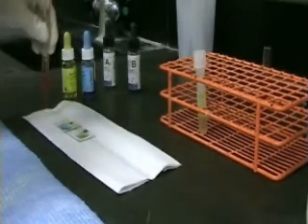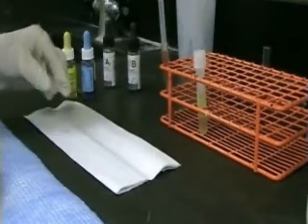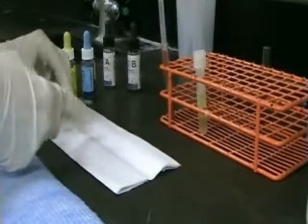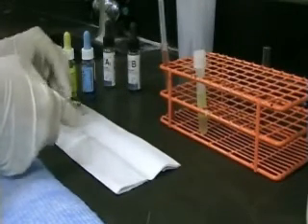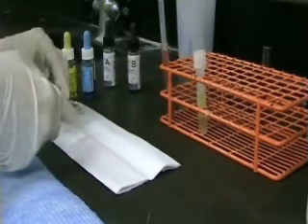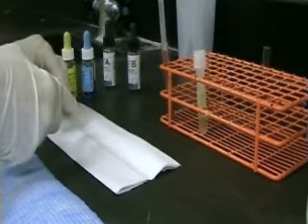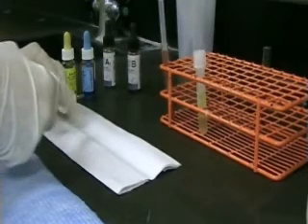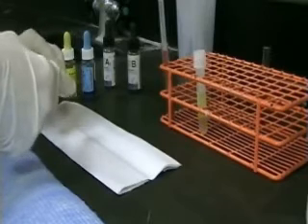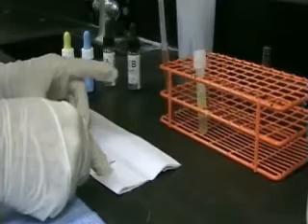In this test, we are testing our patient's red cells for the antigens A and B by using anti-sera, which contains antibody A and antibody B. Agglutinates will form if the antigen and corresponding antibody are present. This is called the forward group test in an ABO typing.